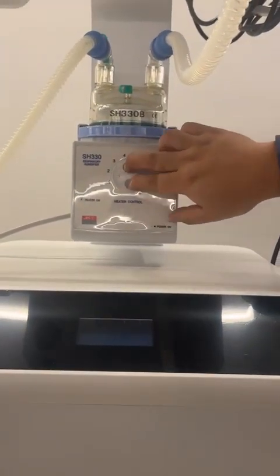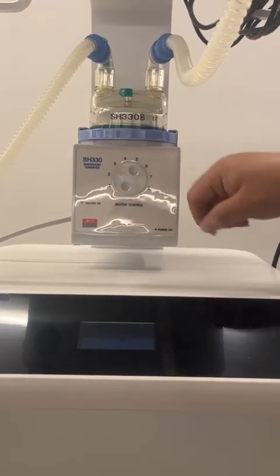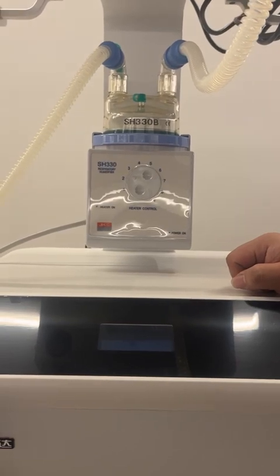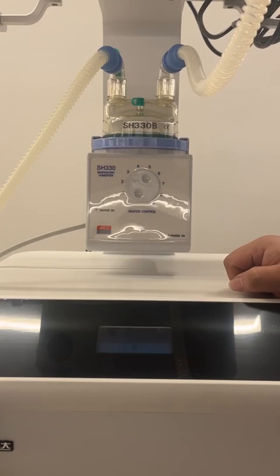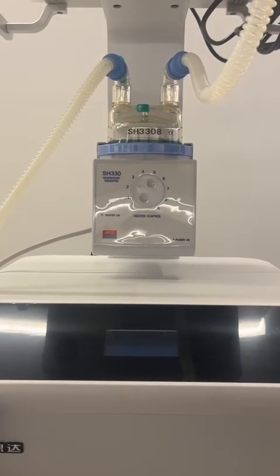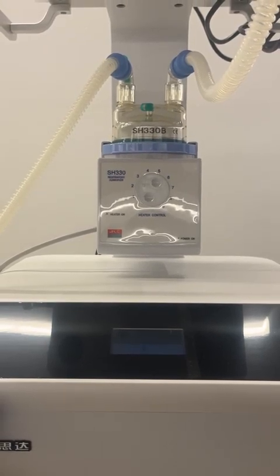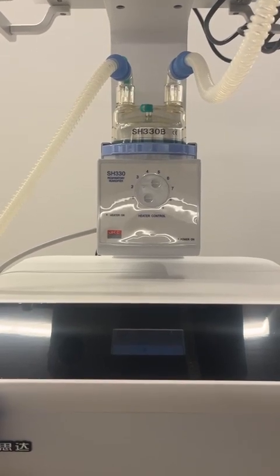We use our 2 fingers to set like this. And usually, we will set it between 2 and 3 because it's our experience. Usually, when we set it between 2 and 3, the temperature will be exactly 37. But actually, you will check the thermometer for the exact one. Just keep it at 37 because 37 is the human body temperature, so it will not hurt the patient and makes the patient much more comfortable.